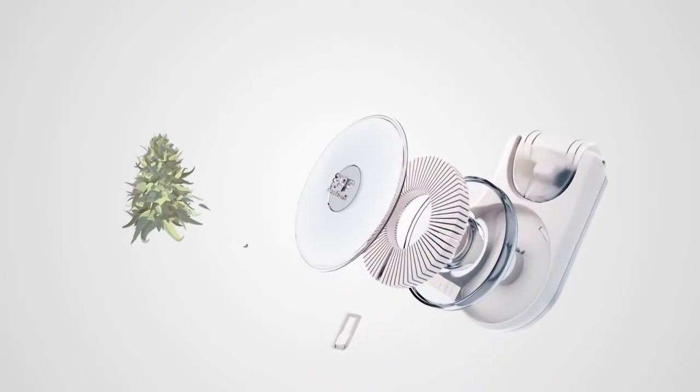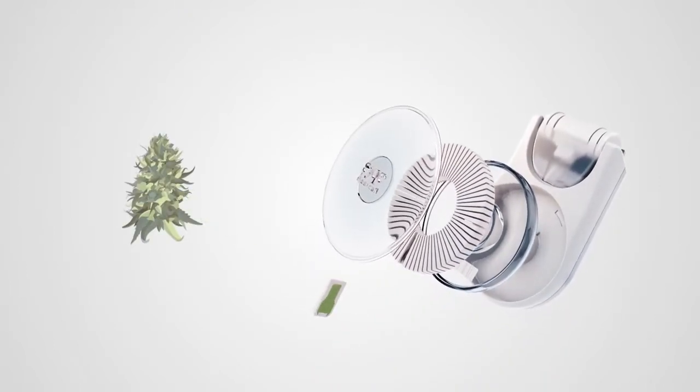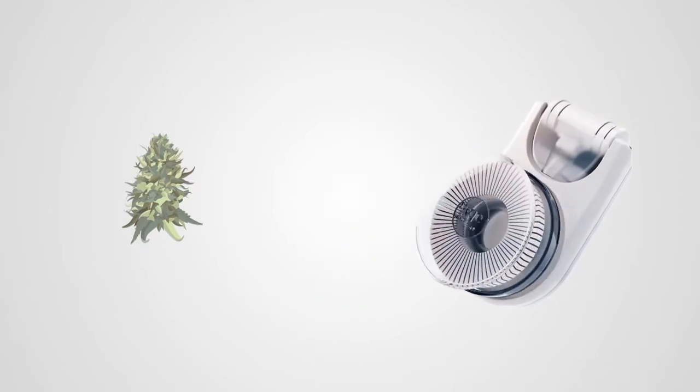Cartridges preloaded with standardized cannabis flowers retain all natural compounds in their raw form.